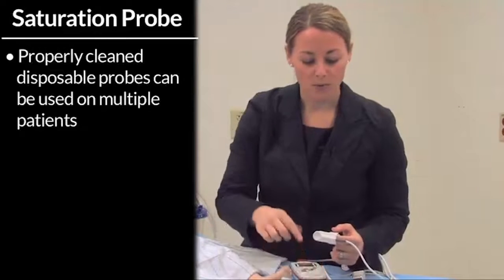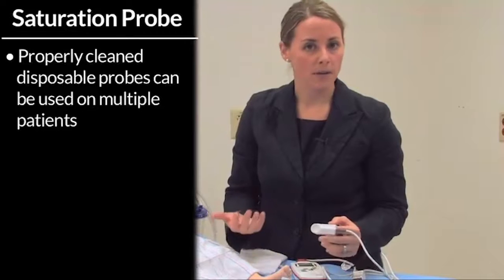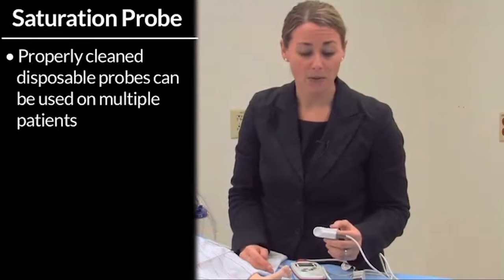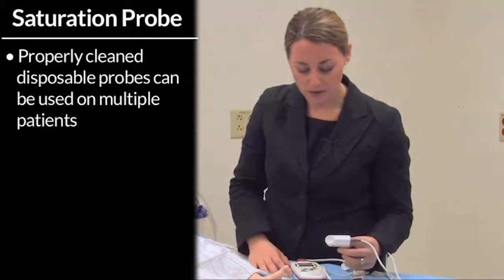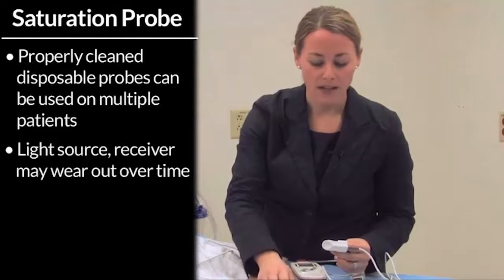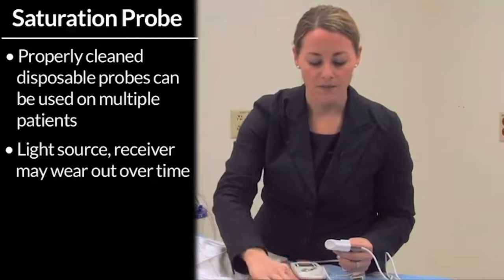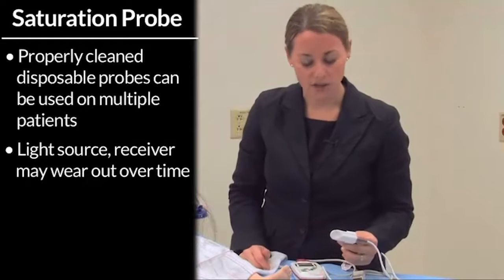The disposable probes are meant to be used only on one patient, but in certain environments you may need to reuse them, and as long as you clean them, they can sometimes be reused. It must be said that over time, the light source and the receiver may get worn out and may give you not very accurate readings over time.